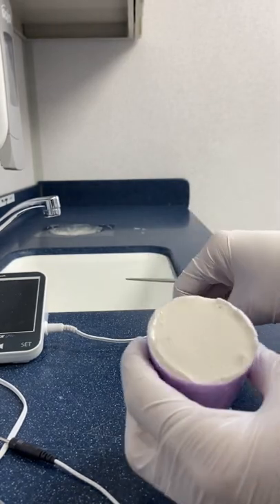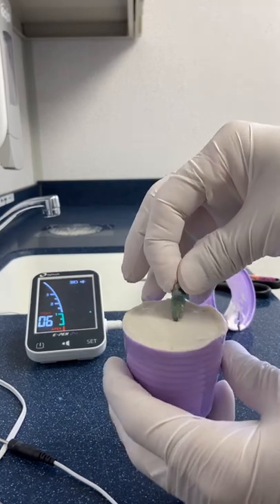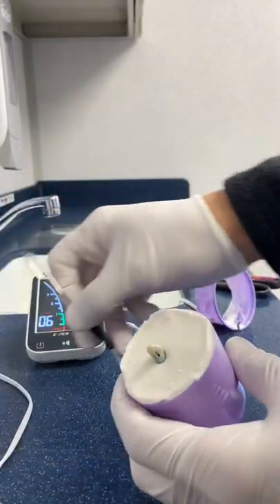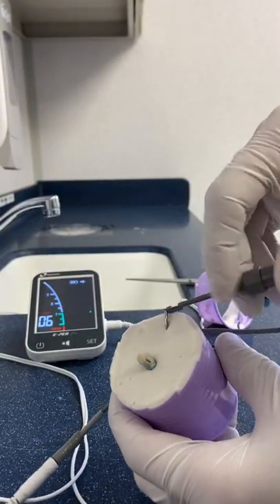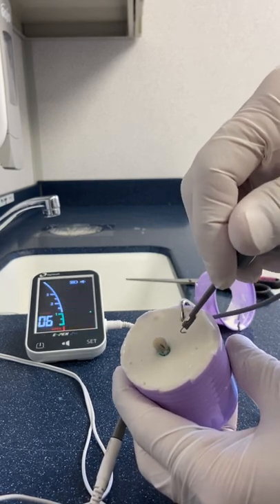Then you can use your apex locator and your tooth. Just take your tooth — you've grown your PDL for your tooth, and it's as simple as that. Place your apex locator lip clip and your file. Your alginate acts like a PDL. Here we go.